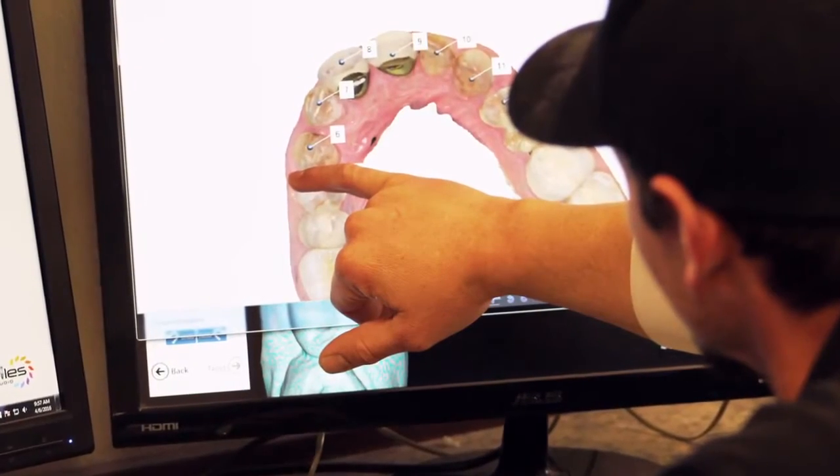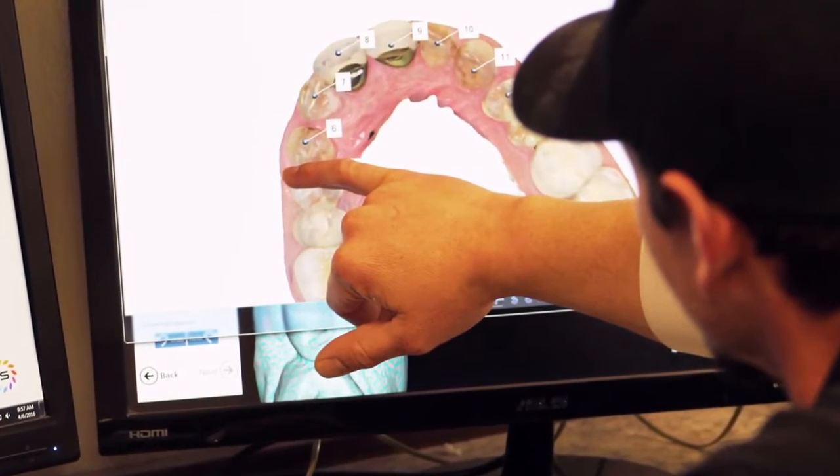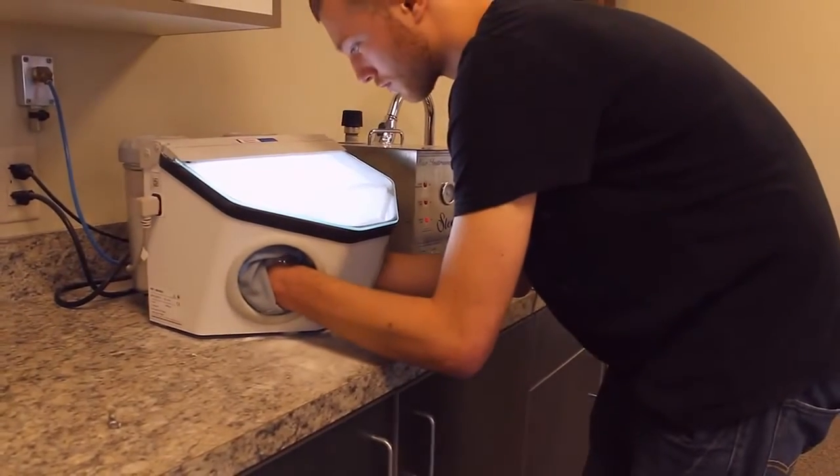And to be able to do that gives you a finished margin almost as you print. If designed well enough, it's almost a finished crown before it's even put into metal. When you're able to print and accurately take a CAD file, print it, cast it — the metal finishing and the time that it takes to do metal is pretty low.